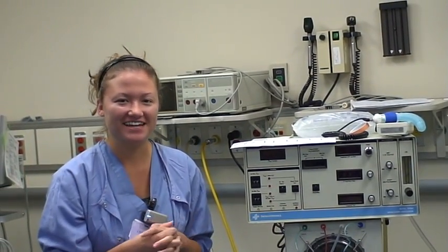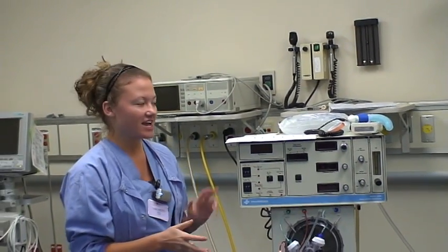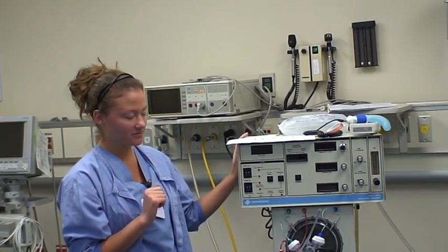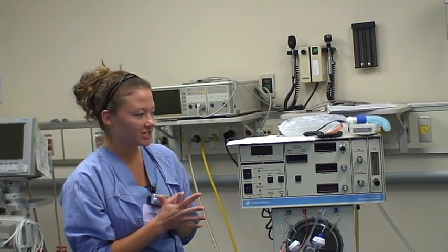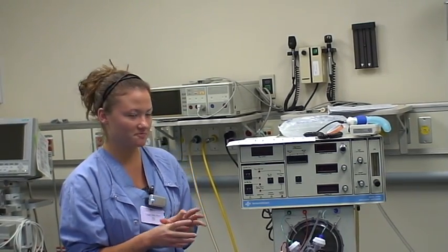Hi, I'm Stephanie and today I want to talk about high frequency oscillatory ventilation and how to set up the oscillator. The oscillator is used for pulmonary conditions that have a very low lung compliance, such as infant respiratory distress syndrome.